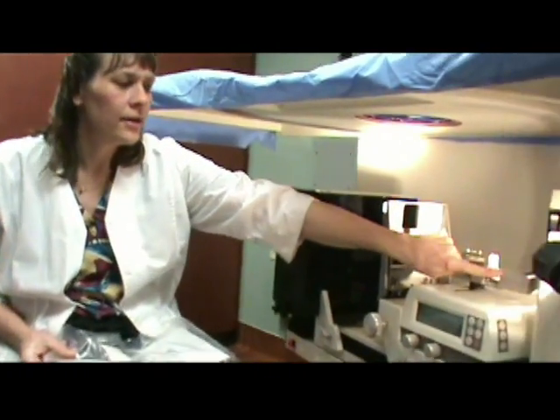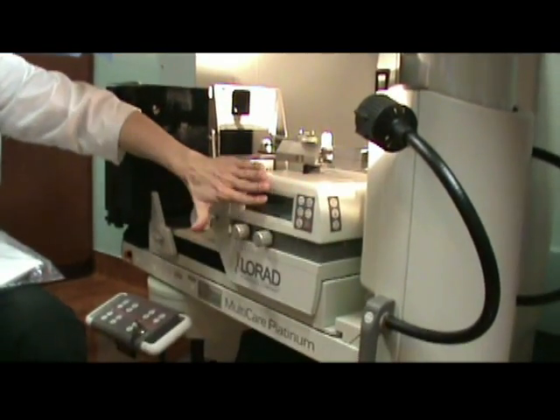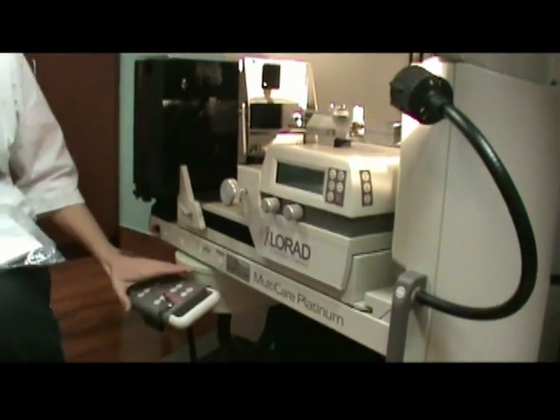The needle guide area is right here, this main stage drape covers this — this is the stage area — and this is the control module.